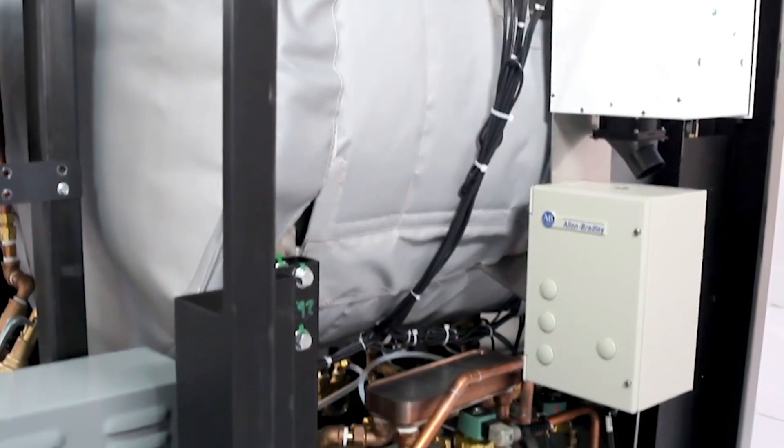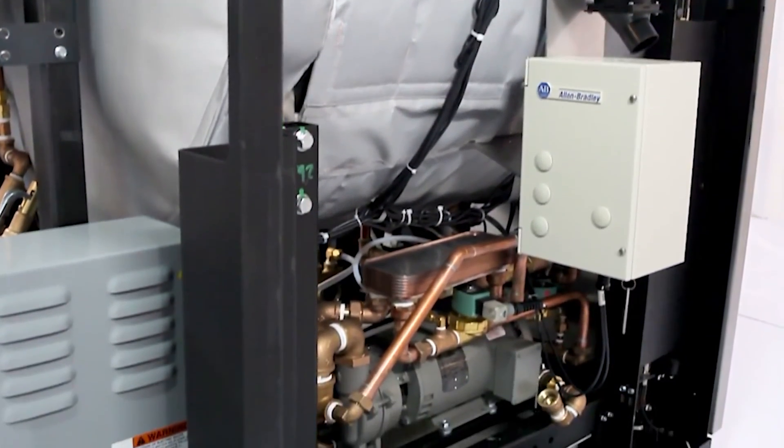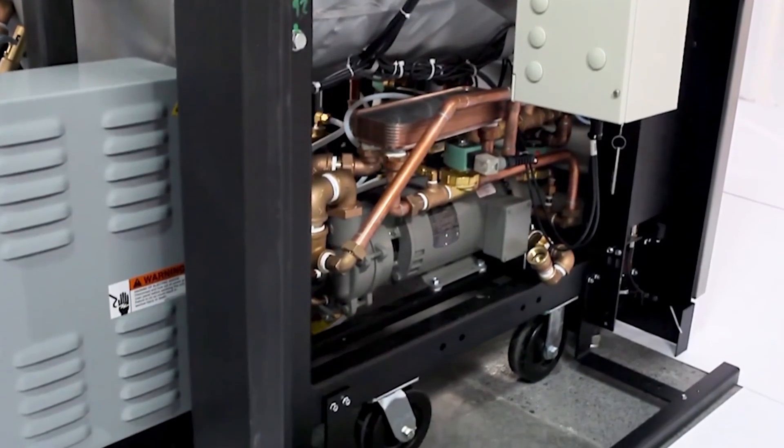The closed-loop effluent cooling system is a simple alternative to save water used to cool steam effluent generated by gravity and liquid cycles.